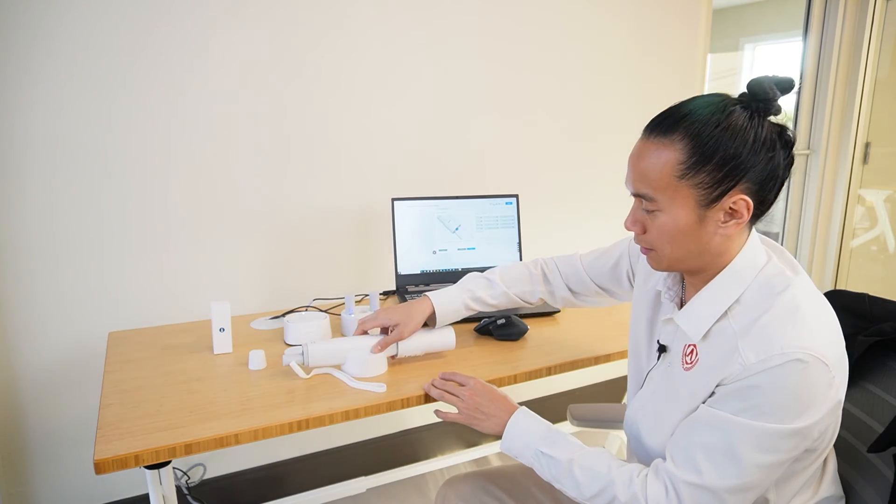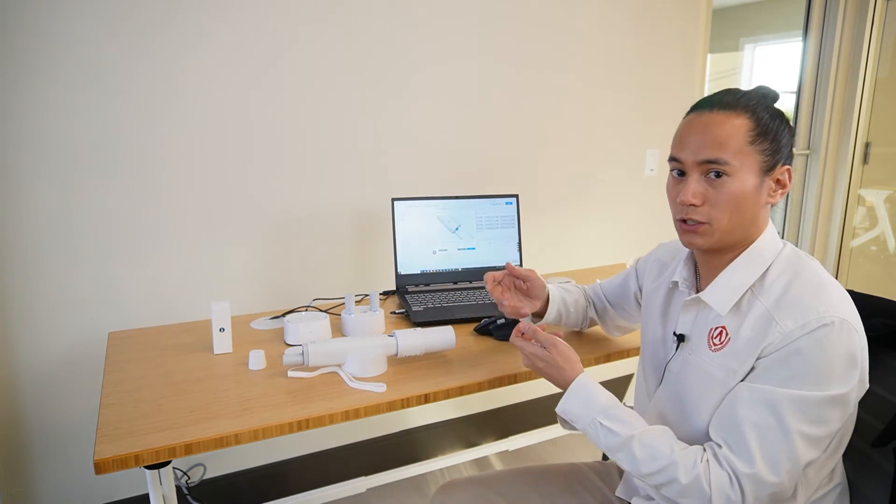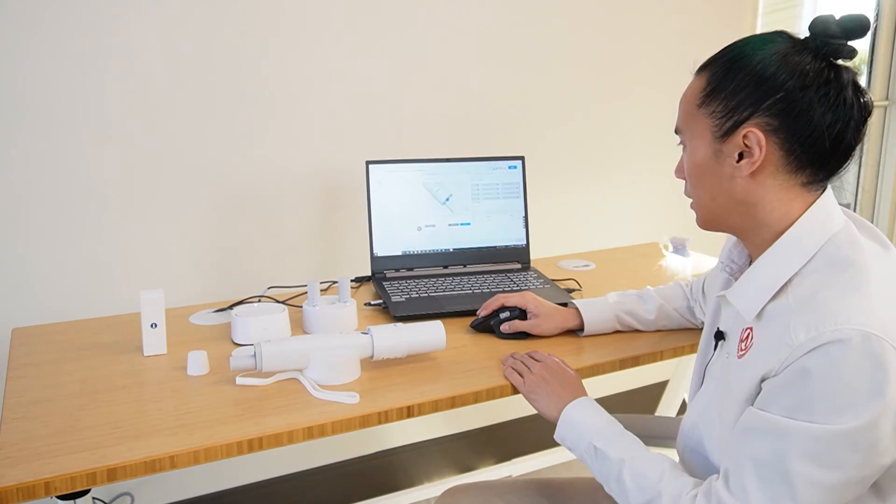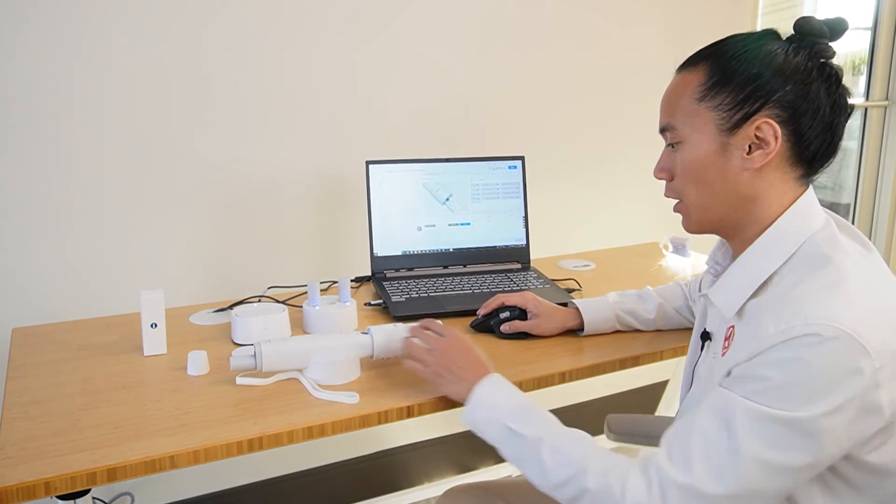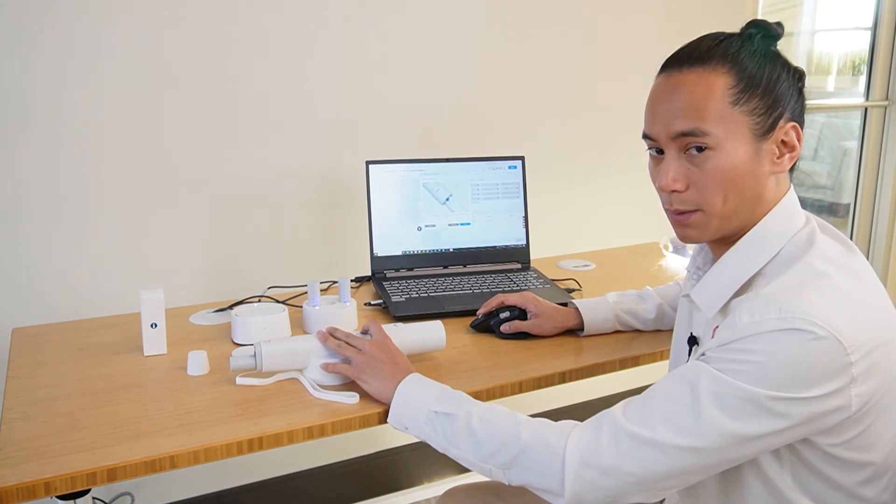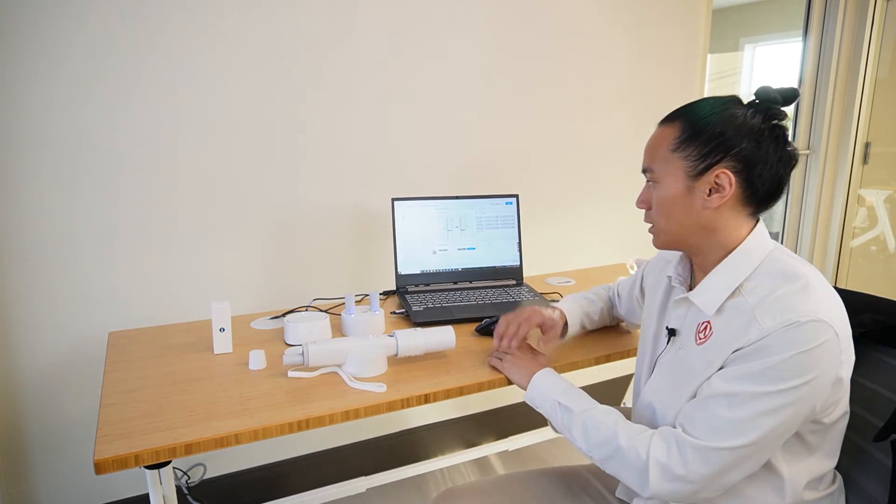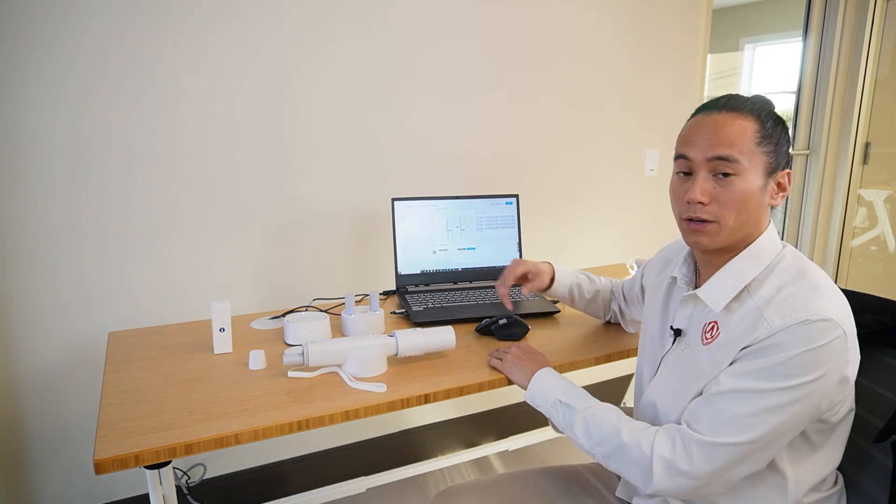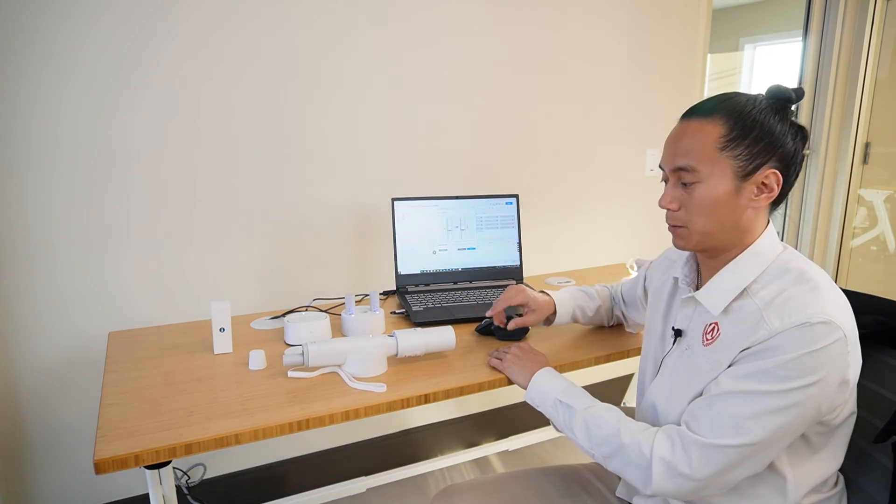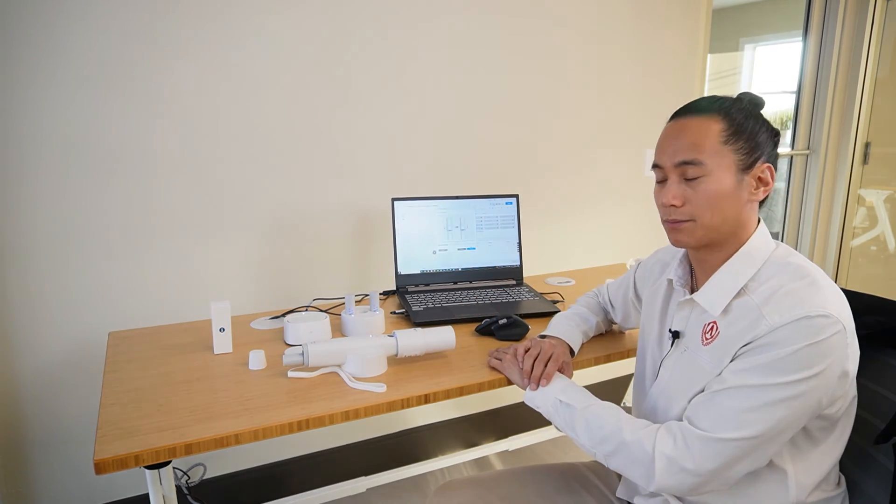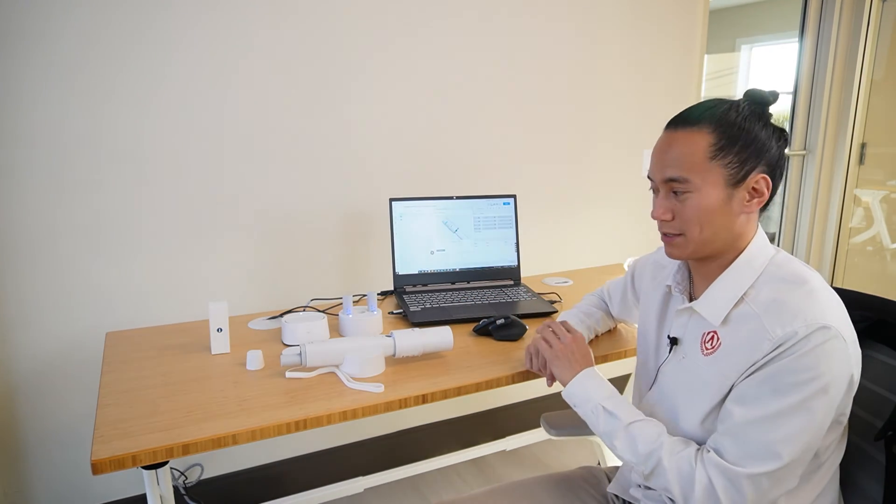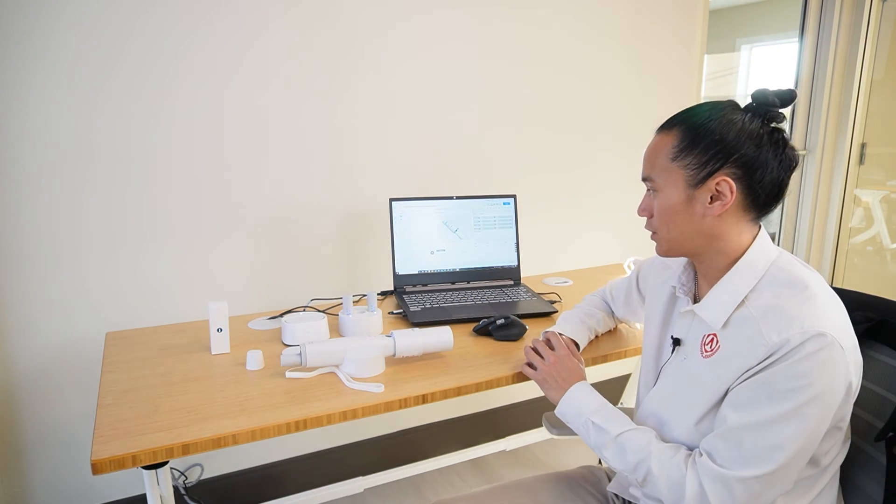I like to calibrate while my scanner is on the dock, but you can hold it in your hand as well. From there, we'll click the function button, which is the blue checkmark button here. Once the progress bar is full, we'll be able to start turning the calibration dials. After the initiation process is finished, we're going to start turning our calibration dials.